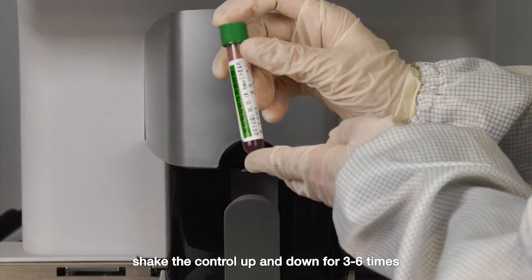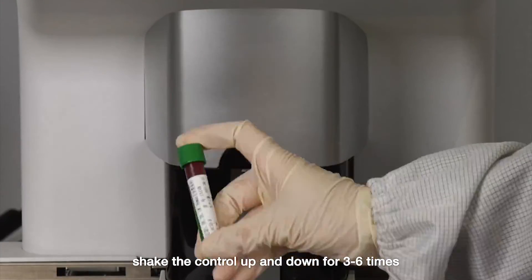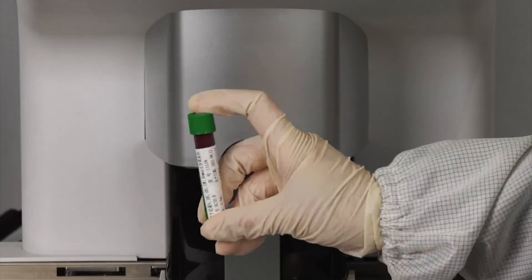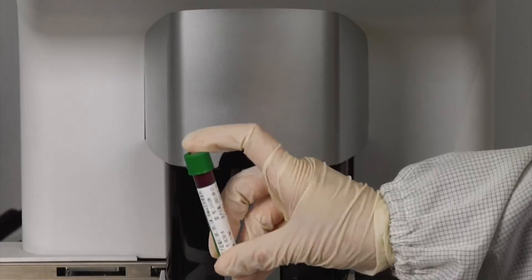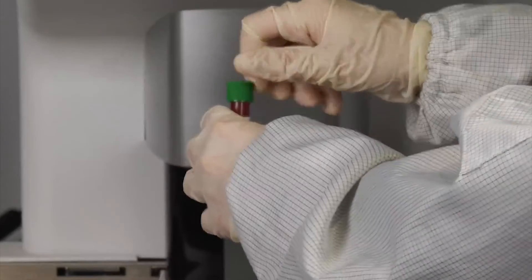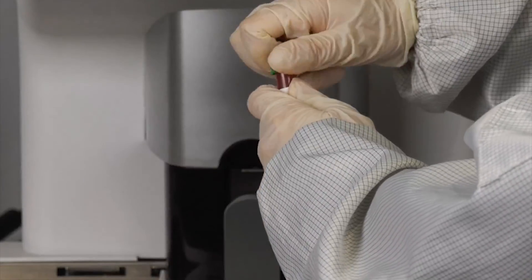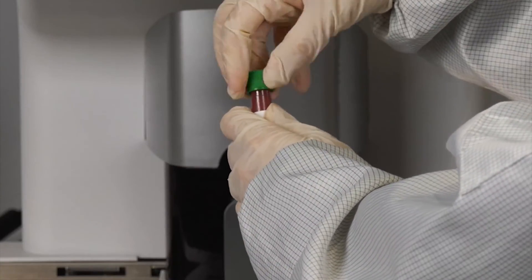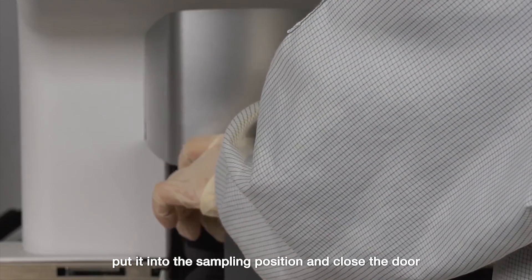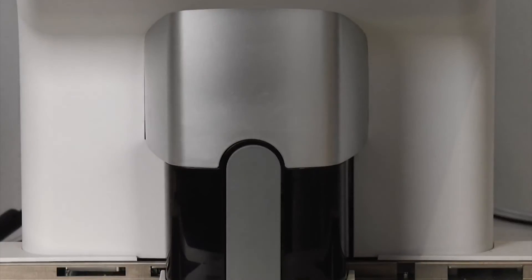Shake the control up and down 3 to 6 times. Open the cap of the control. Put it into the sampling position and close the door, then press the Start Count button.